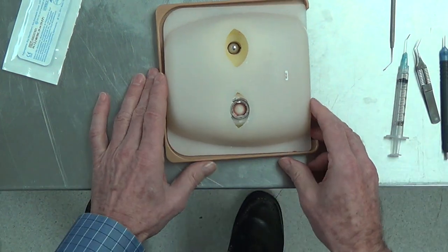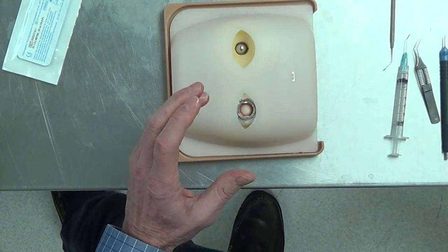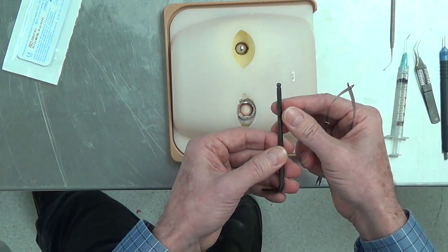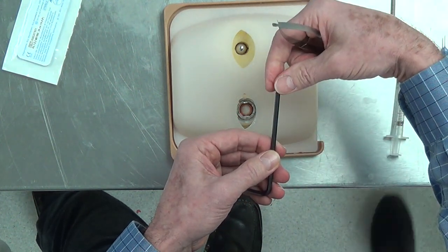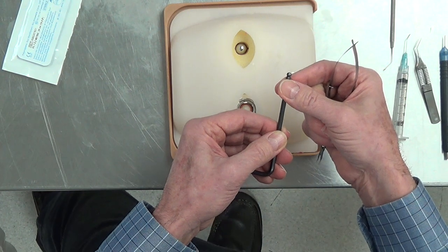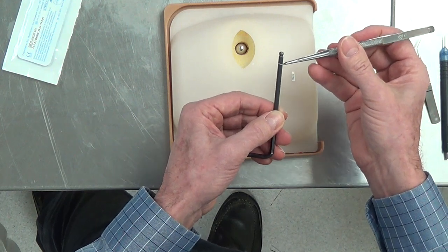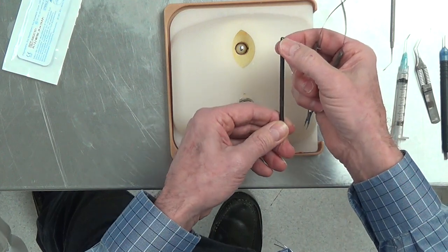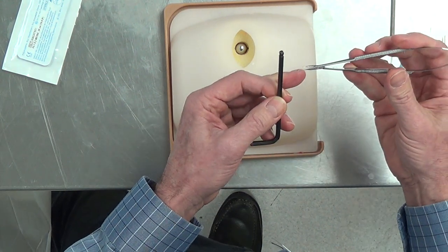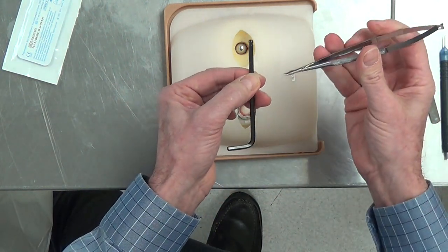The final principle is where you hold the needle. All needles have a swage on the end where the suture comes in, and a round area of the needle. You do not want to grab the needle holder at the round area, because the needle would be able to rotate easily. Away from the round area, the needle becomes square. If you grab the square part of the needle with a smooth-surface needle holder, the needle will not torque within the needle holder.